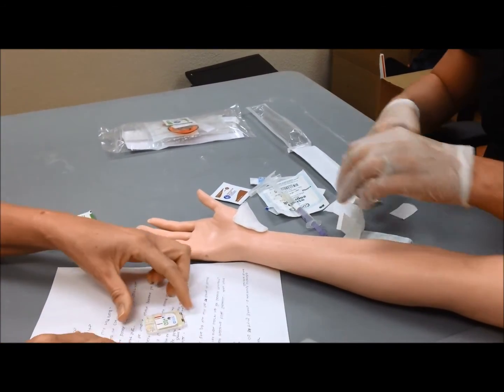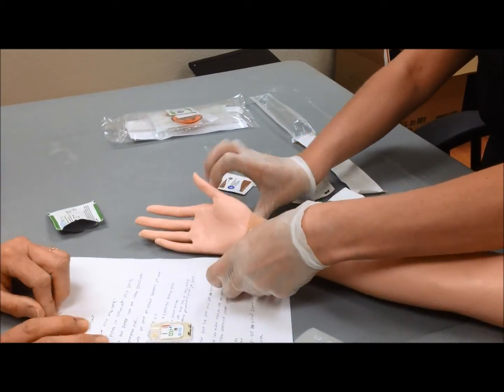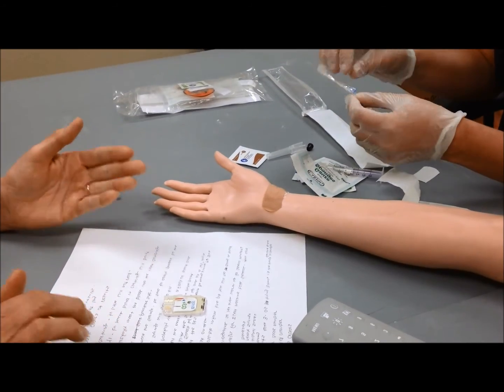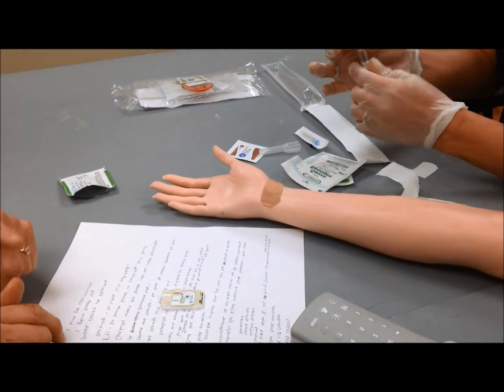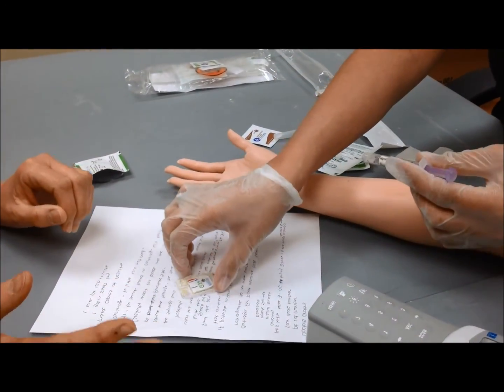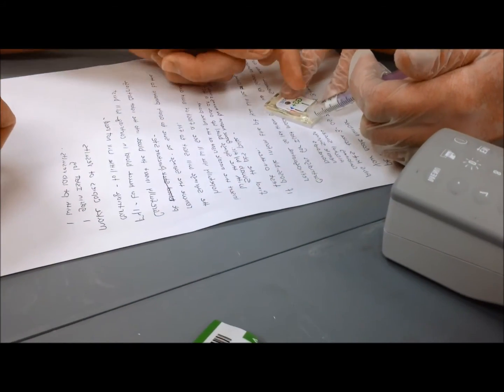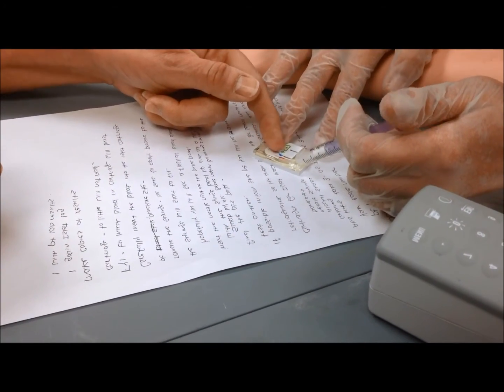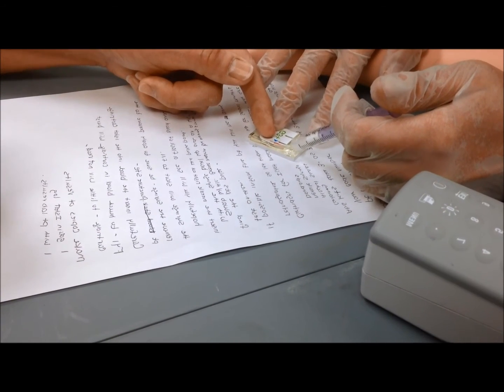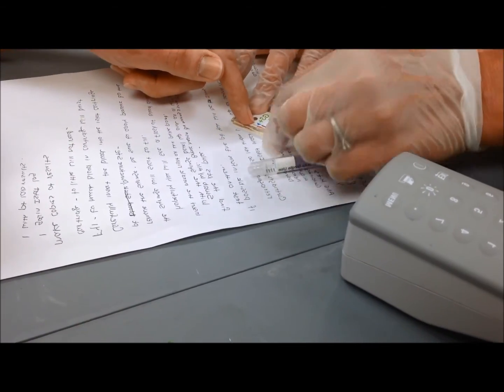Carefully insert the blood into the iStat cartridge, which is very small. And for your information, too much blood in the cartridge will make the cartridge burst in the calibrator machine. Too little blood in the cartridge and it won't read. So carefully, it doesn't take much. There's a little circle and there's like a thermostat reading. So put a tiny amount of blood in there. Remember, blood is pretty thick. It goes to there, cap it off.